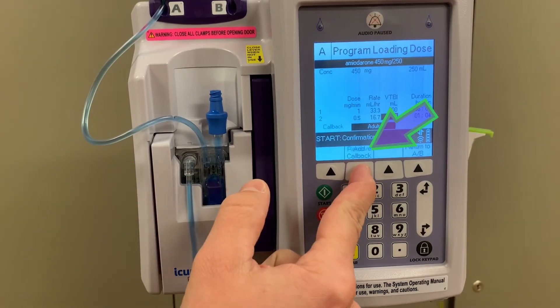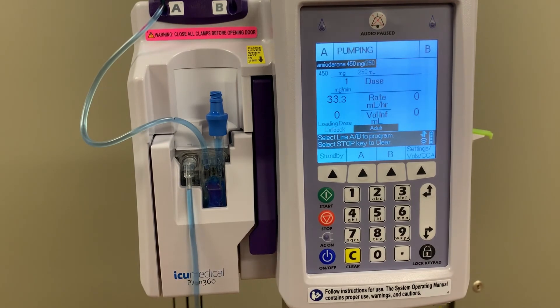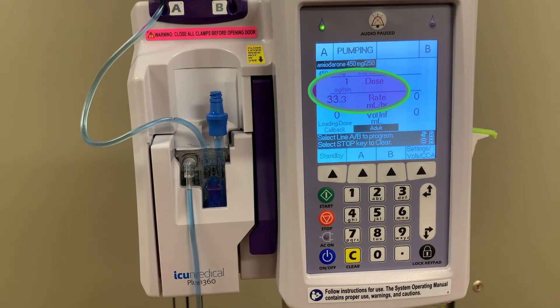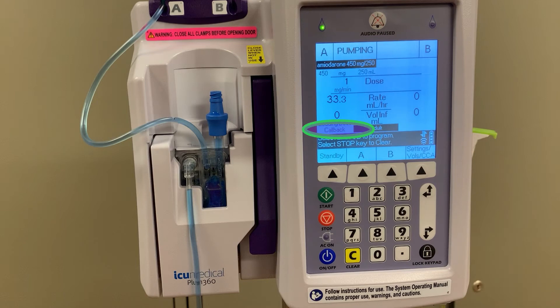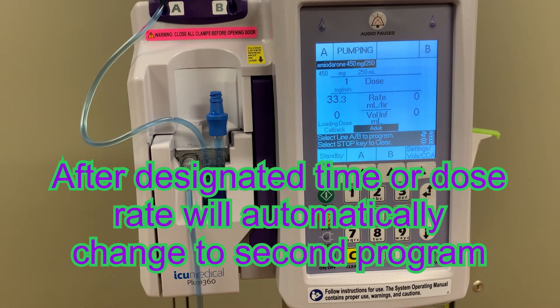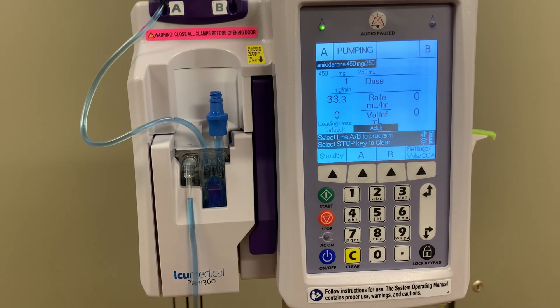We again have the option of a callback alarm. Once the infusion is started, the infusion screen gives us additional information. It tells us the current program, but also shows that this is still the loading dose phase of a 2-step program, and that we have an active callback alarm programmed as well. After 6 hours, the rate will automatically change to 0.5 mg per minute, and our callback alarm will sound.